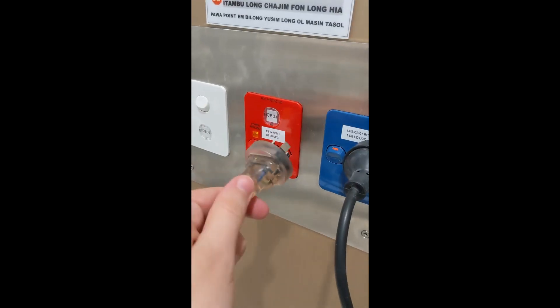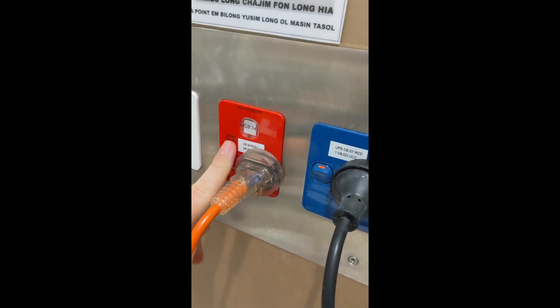Make sure power is plugged into the machine and then make sure that power is connected to the wall and turned on.